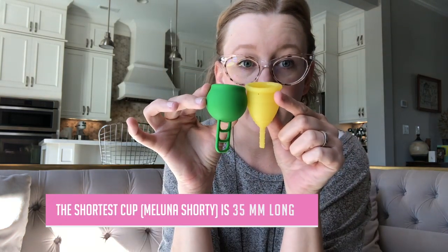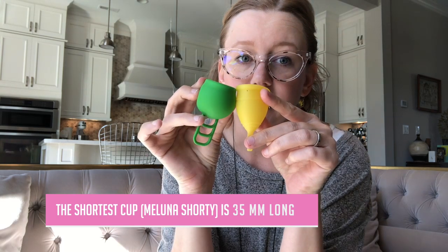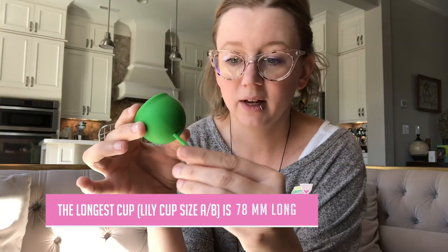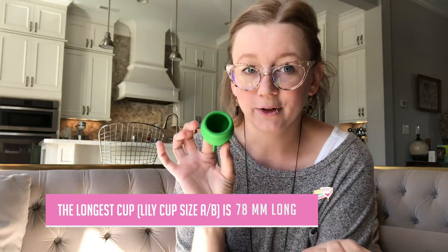It is very low — it looks very, very short. If we compare it to a size 1 Lunette, even the size 1 with the stem removed, it is way shorter. This is listed as 39 millimeters long without any of the ladder stem, and for the second size or the first, about 50 millimeters. If you have a low cervix, this looks like a very appealing cup.